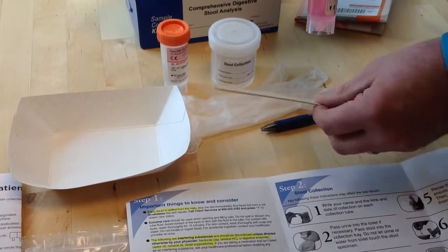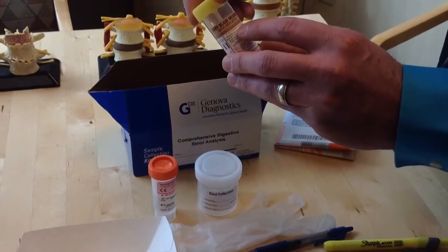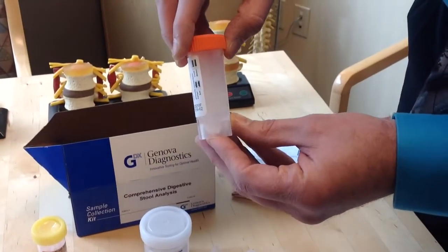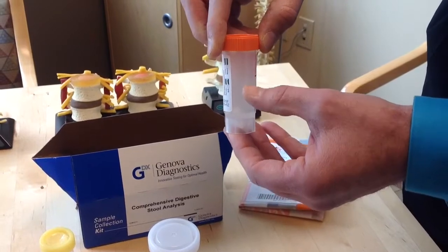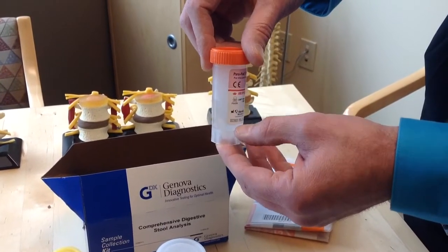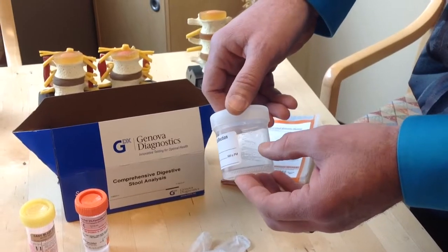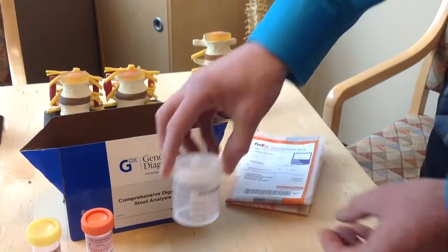You have the spatula to assist you if you need, and you only want to fill it to the horizontal line. So look closely, it says add specimen to this line, so it's not a whole lot, only about that much. Okay? You'll do the same thing with the orange top container. It's got a little spoon on it. You fill it up to the red line. Don't overfill the tubes. Okay, the amount of chemicals that are in the tubes are calibrated to the volume of stool sample that you're going to be putting in there. So make sure you only add it to the fill line. And then go ahead and include some in the stool collection cup. Fill it up to about the 40 milliliter line, which is about even with the patient name line here.